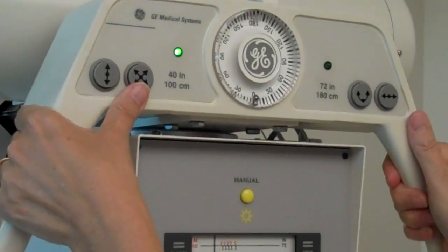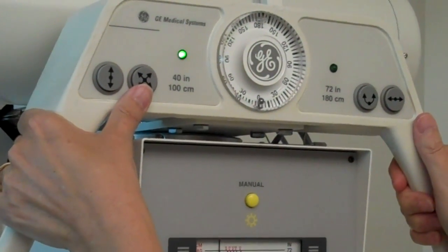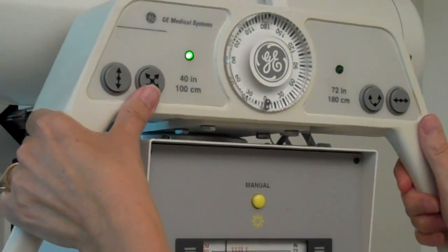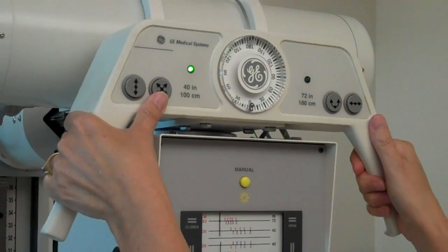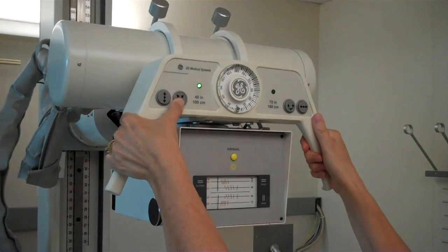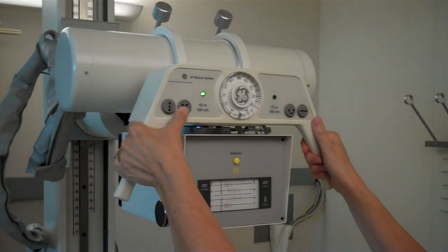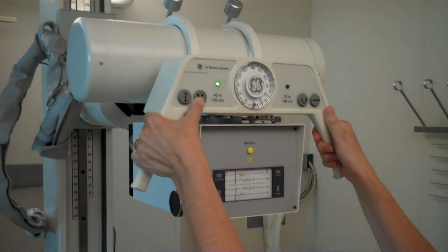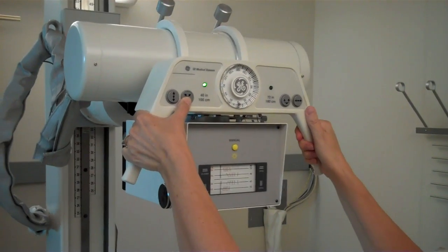The next button allows for movement in any direction. It allows for vertical and side to side.